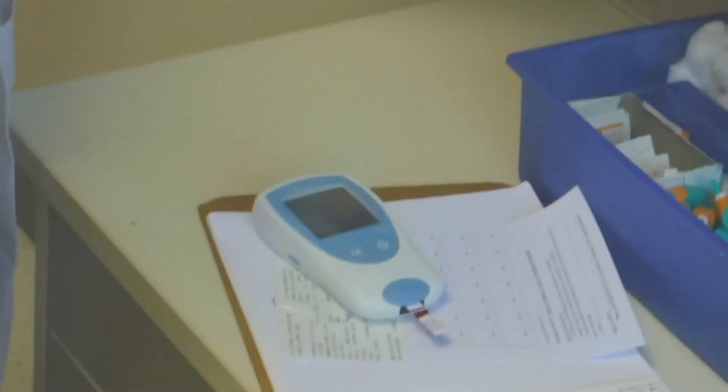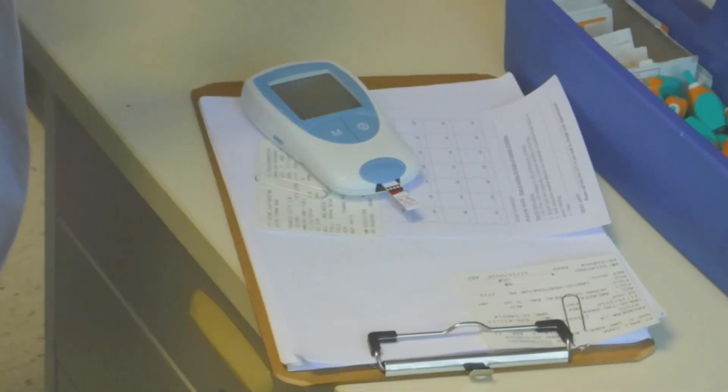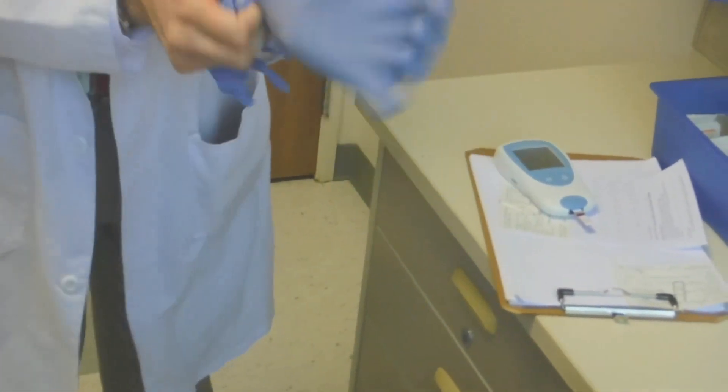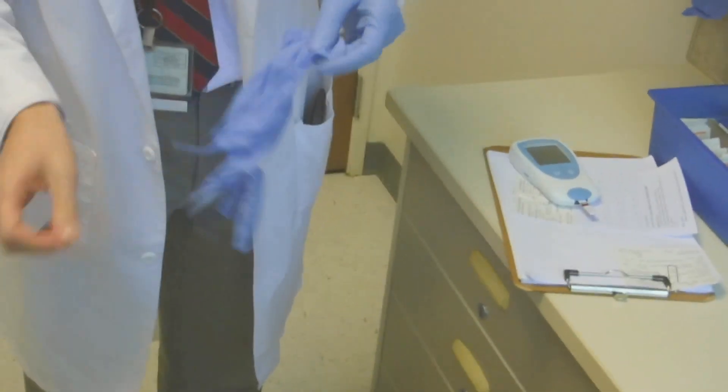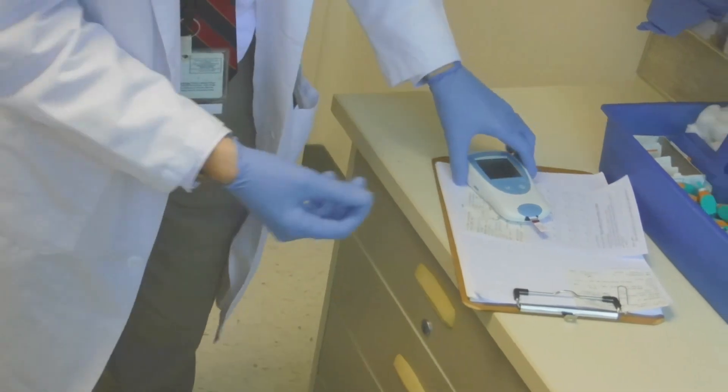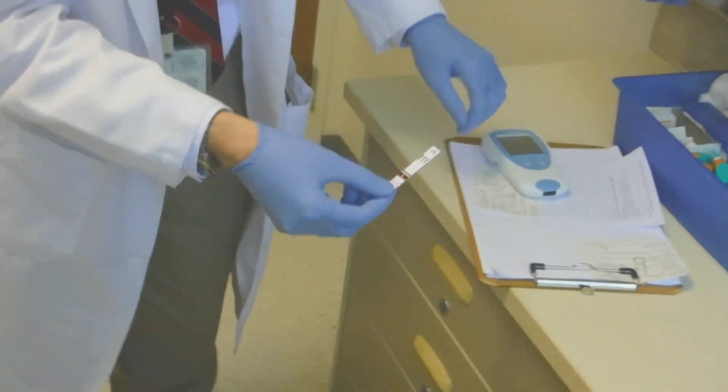I've got to have a place to throw these, don't I? I can't just put them in the trash can. Well, the lancets are what we worry about more than the strips. Oh my God, I'm actually still bleeding. I probably should have let her take this. I was so excited to have this machine.